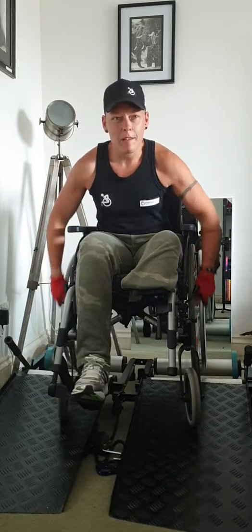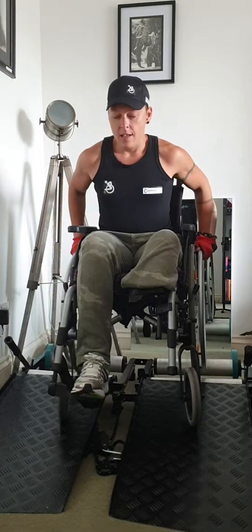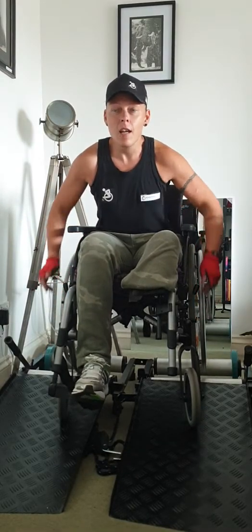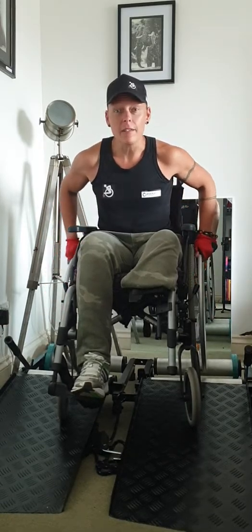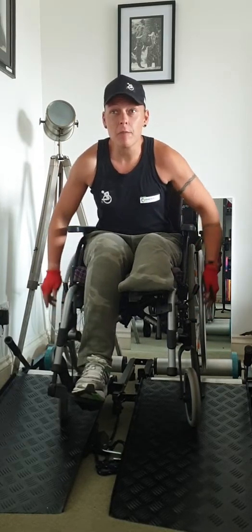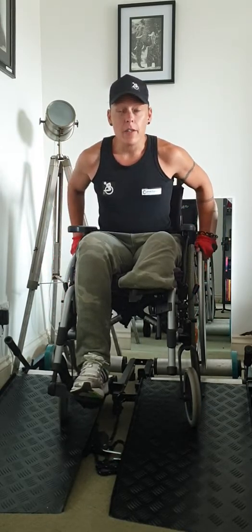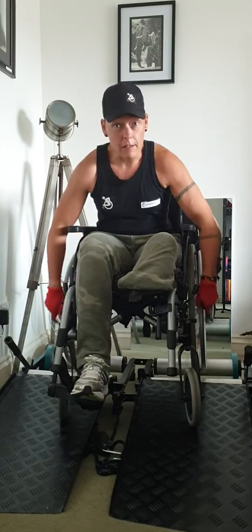I'm currently up to about six miles training, and using the Invictus Active has made things a lot easier for me. Before using this, pretty much every time I went out I was getting shoulder injuries. This is mainly caused by the positioning of my chair, but using this means I can actually position myself in a better way because I don't have things like the angle of the pavement or hills to consider.